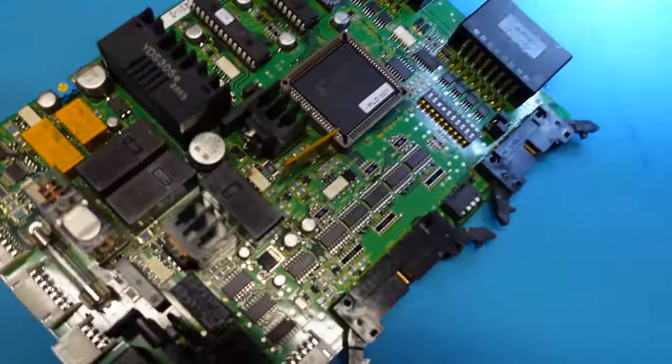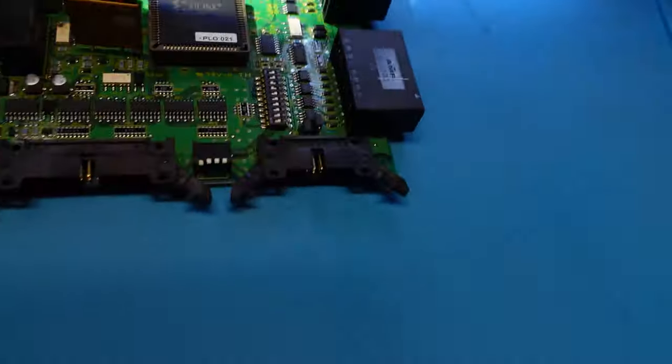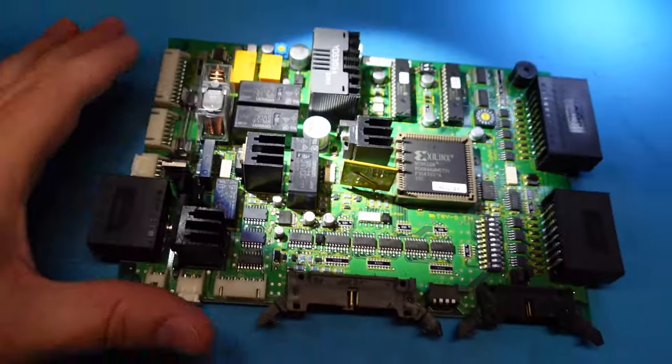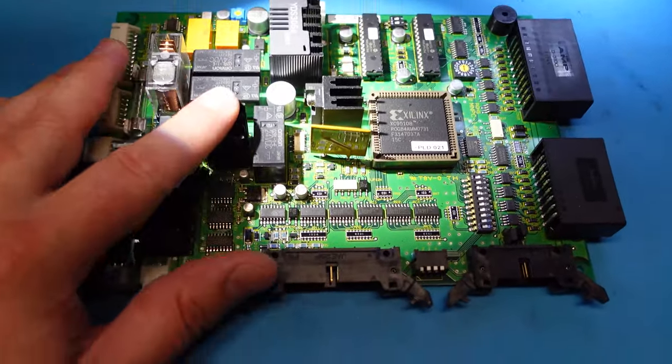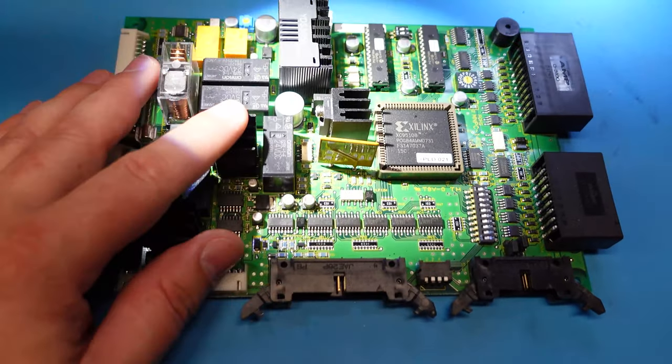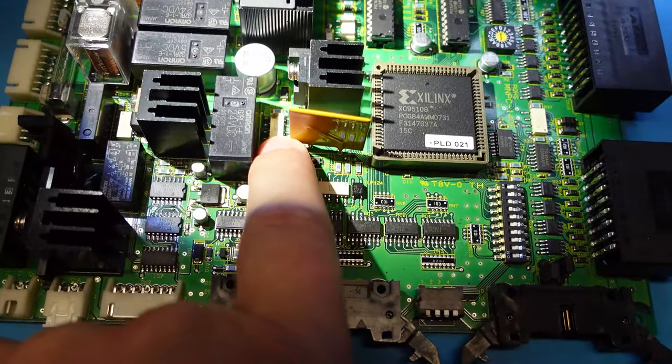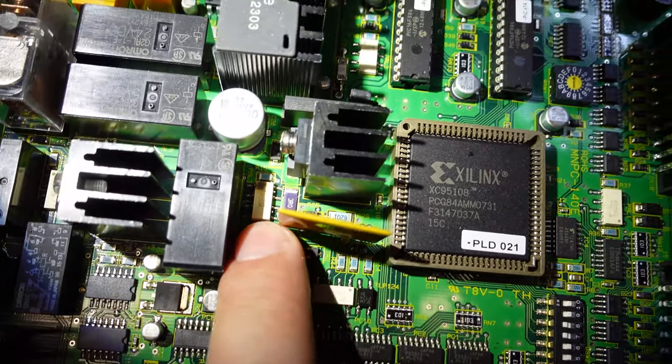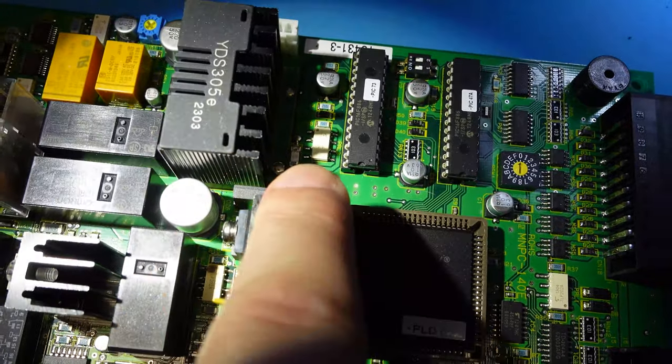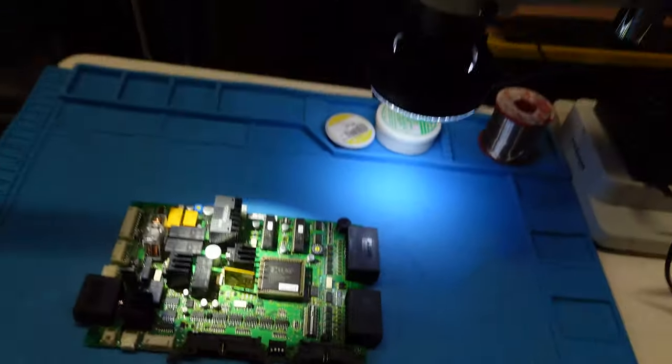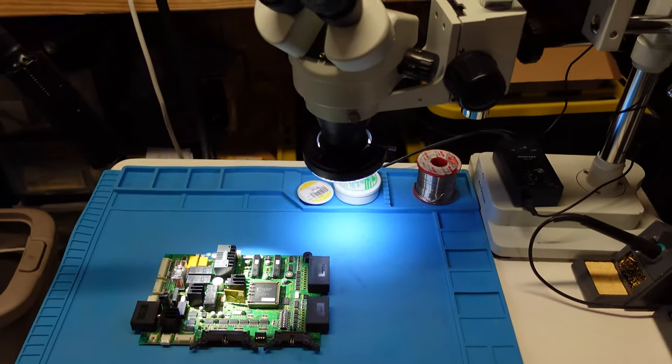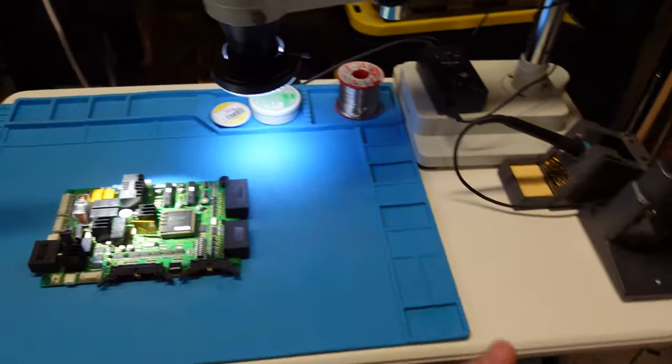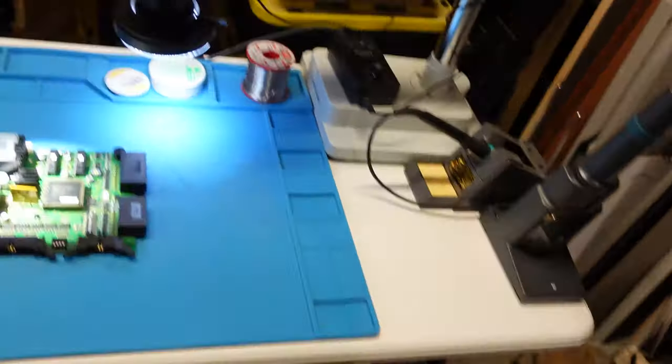And one of my first subjects is going to be this guy right here. You guys probably recognize this board. This would be a relay board from a Skytron surgical table. This would be the one that popped an optical solid-state relay, which would be that guy right there, and also the fuse, that one right there. So one of my first projects ever on this thing, I'm going to show you guys how to fix this board now that I have everything all kind of set up.